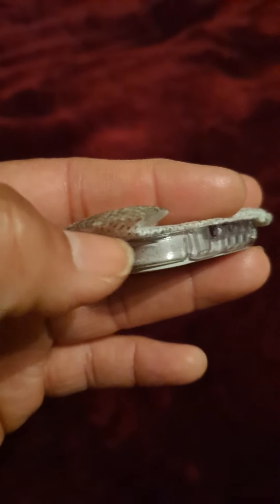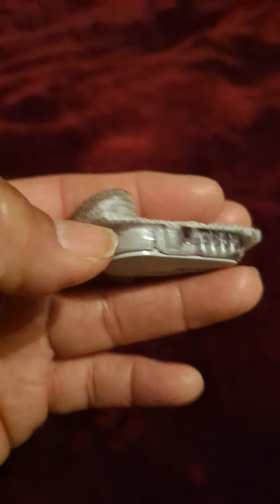What you're going to do is take the transmitter off of the plastic sensor piece, because usually you will save it. It's a gray transmitter that says Dexcom G6, and it snaps off.